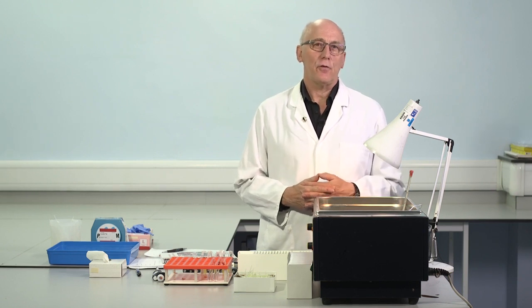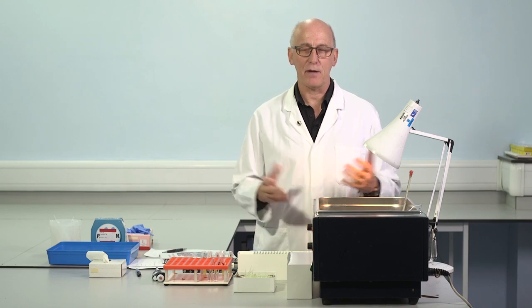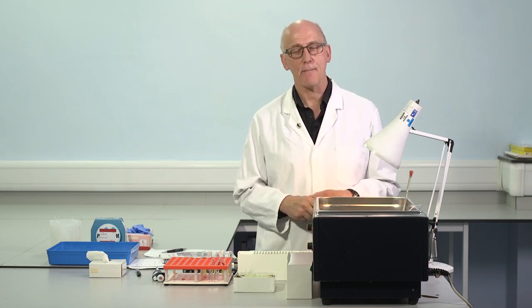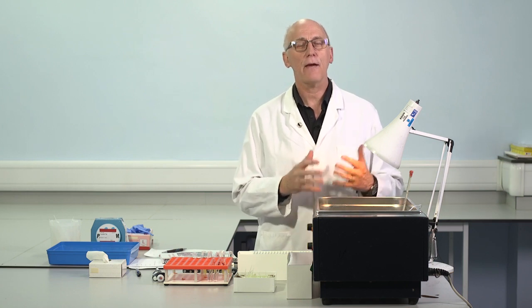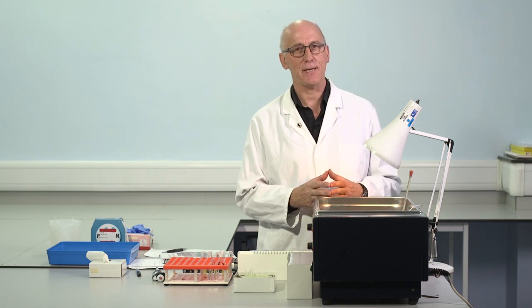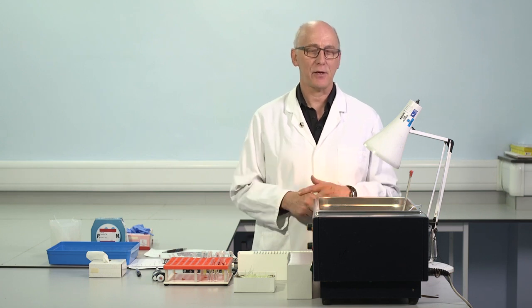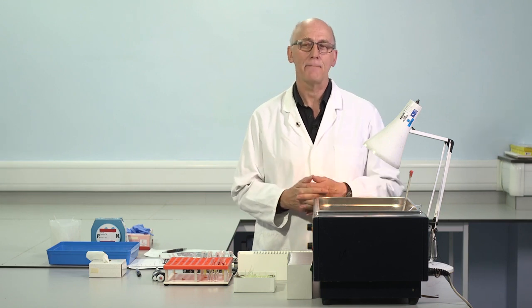It's particularly useful to control the thawing conditions for frozen samples. Many of us will perform tests on frozen patient samples from time to time. I imagine many of you will do the same. And I think it's important then to follow careful thawing conditions. We should thaw plasmas for 3 to 5 minutes in the water bath. They should not thaw at room temperature, otherwise we risk cryoprecipitation and loss of some of the important proteins. So I think we all need a water bath.